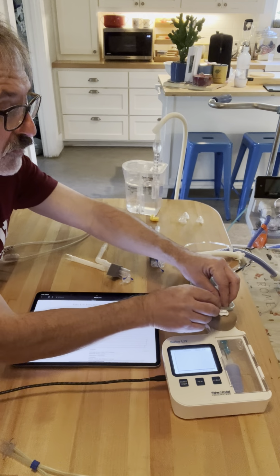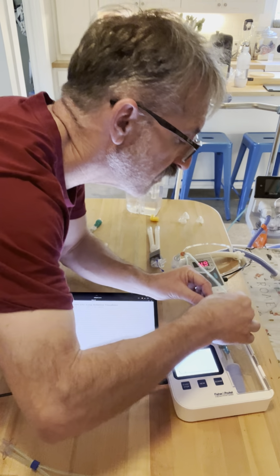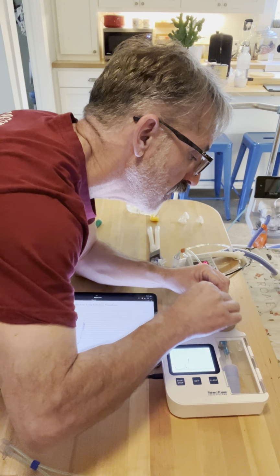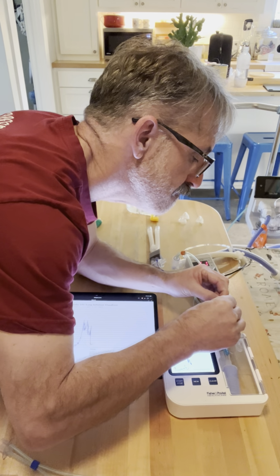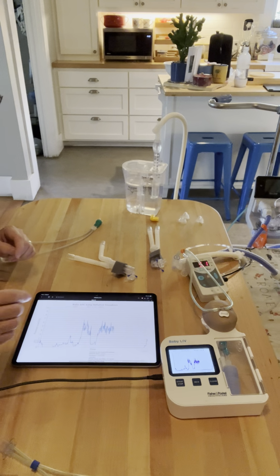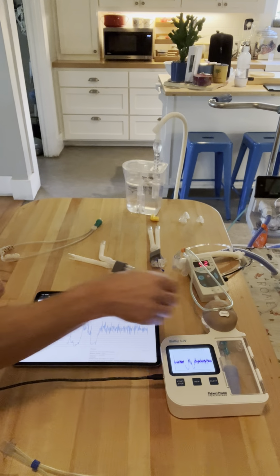And we're going to plug the prongs into the nose. Give me a second, because these prongs are relatively monstrous. It actually does about the same as the blue because they were both as close to 100% already. So we're getting about 5 centimeters of water pressure, 5.2.